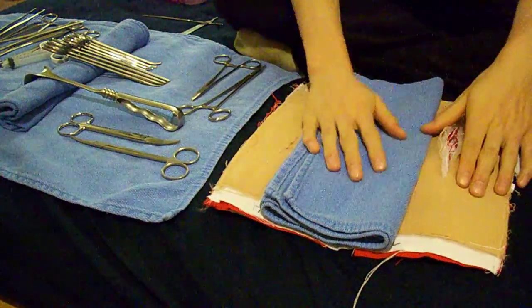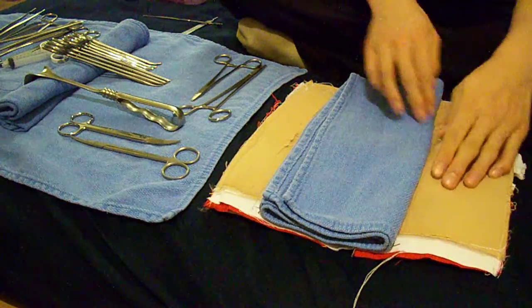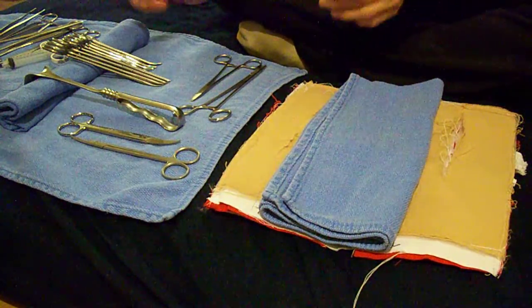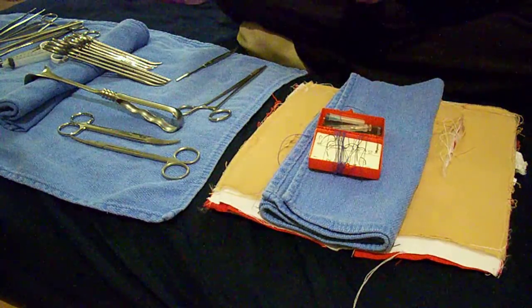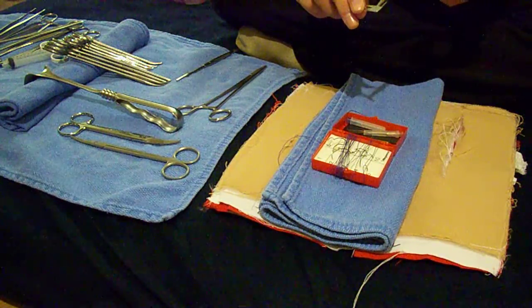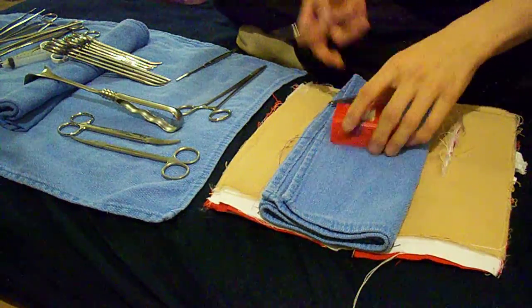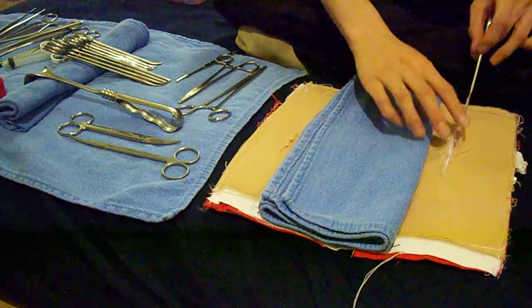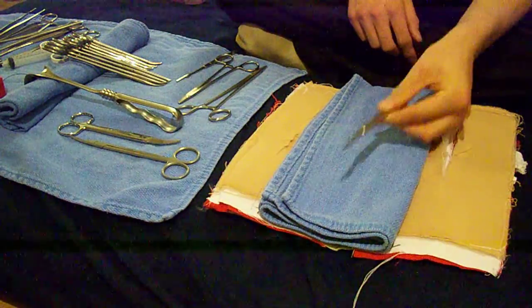This is a little video trying to explain what instruments to use on what layers. I wasn't originally going to go into the incisions but I'll do that quickly. First we need a ten blade — bear in mind that I don't have gloves on — to make a midline incision on the skin and subcutaneous layer. Our first sharp goes down on the back table.